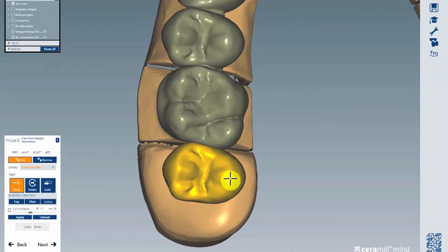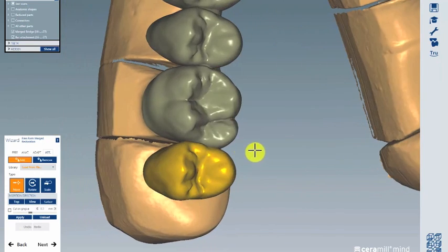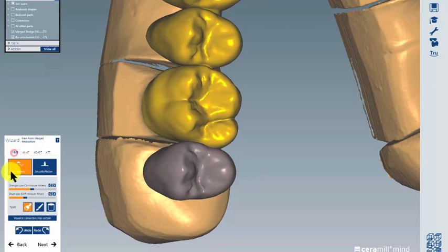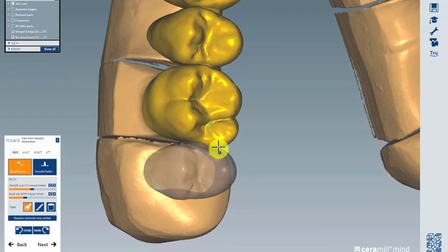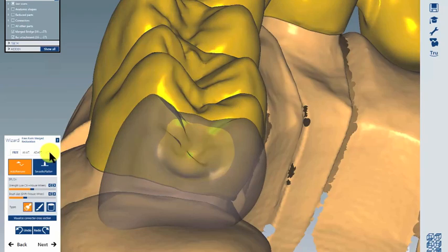Pull it to the position where you want to place it. Before attaching, we need to add some material on number 16. Make the attached part more transparent, then add a little more material here. This is a connector we need. Switch back to Attachment.